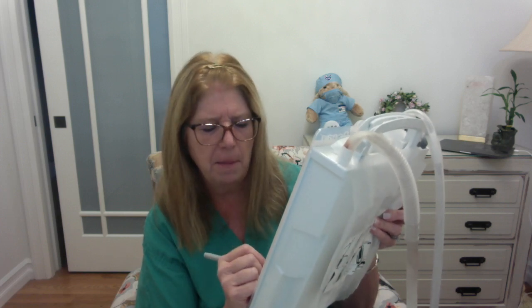All right, so how are we going to keep track of it? Well, you're going to have a pen, and you're going to make a notation right on this actual Pleurovac. So let's say that for your shift it drained 30 milliliters. I'm going to put a date here, I'll put September 10th, and I'm going to put a time, I'll put 10 a.m. So I have made my markings right there, September 10th at 10 a.m.